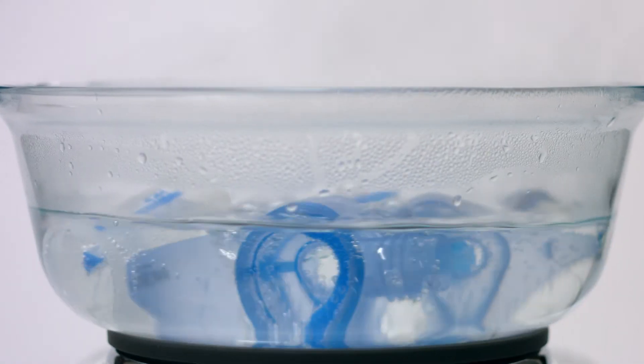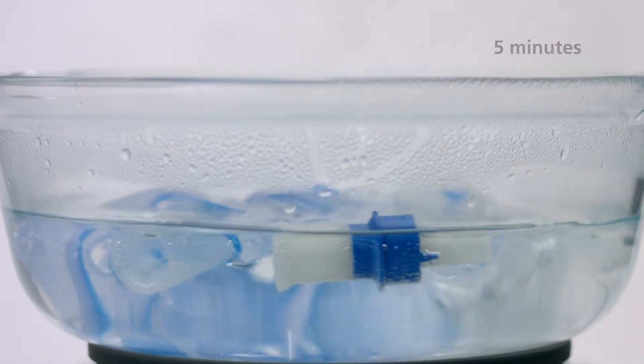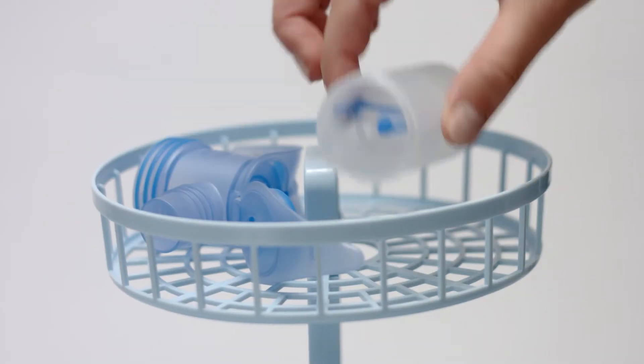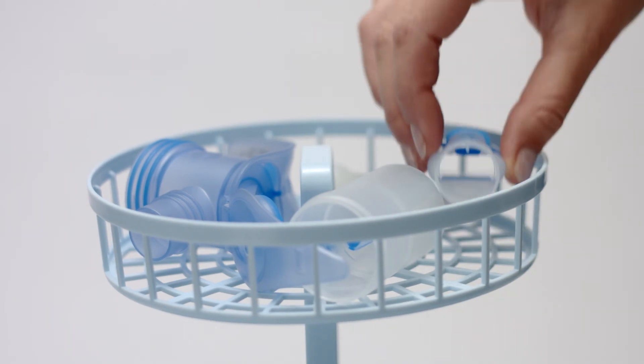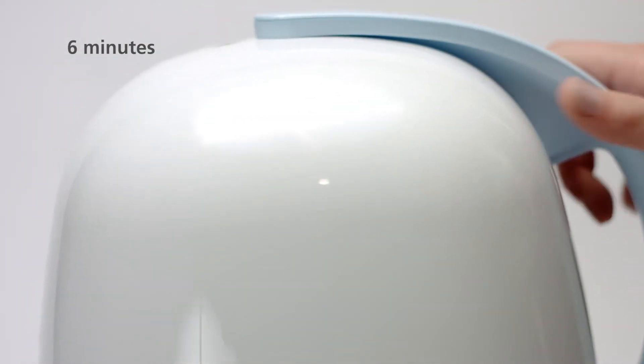Once a day, disinfect the nebulizer. To do so, either boil it for five minutes in water or place it in a standard thermal disinfector for baby bottles for at least six minutes.